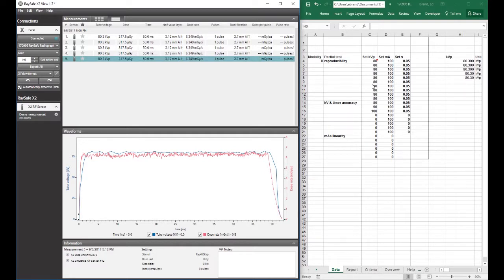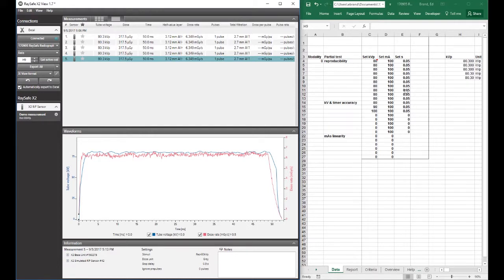Maybe one more. And then I want to show you, as an immediate step here, how to import data from your base unit. So I've done 1, 2, 3, 4, 5. I need to do 1, 2, 3, 4, 5 more because I think we're taking 10 here for our reproducibility test.